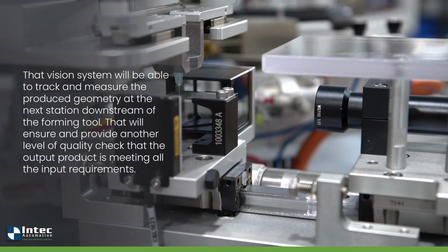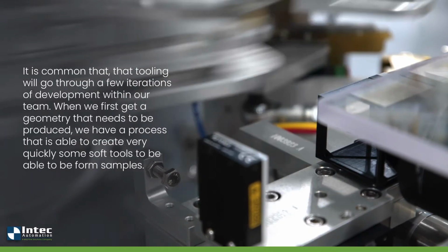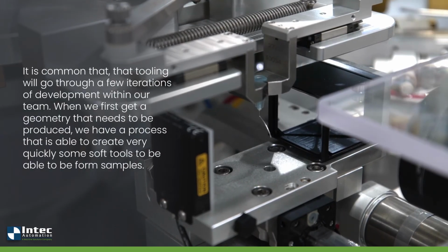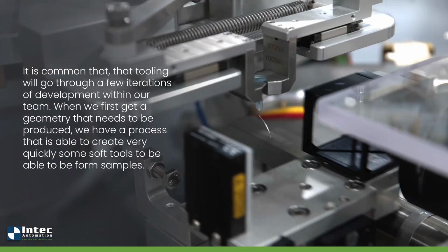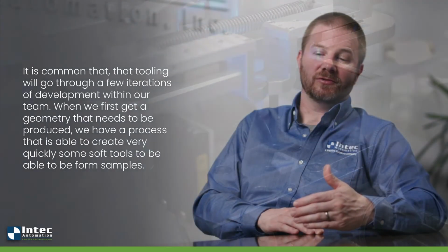It is common that tooling will go through a few iterations of development within our team. So when we first get a geometry that needs to be produced, we have a process that is able to create very quickly some soft tools to form a number of samples. So we will create prototype tools, we'll form cannula, we'll inspect them, measure them, see if we're within the geometry requirements of the drawing.